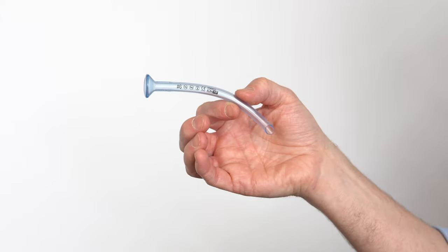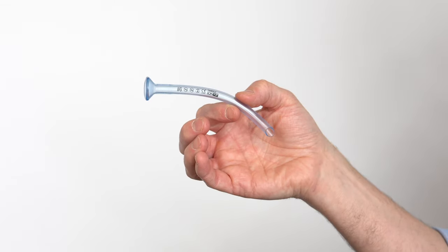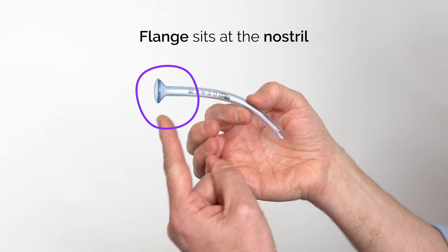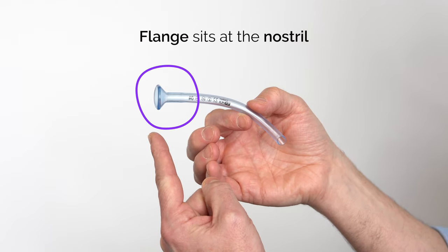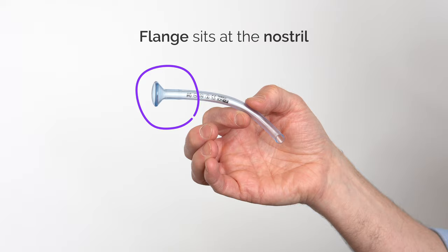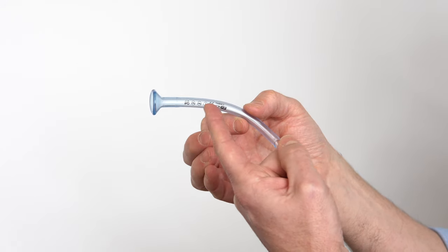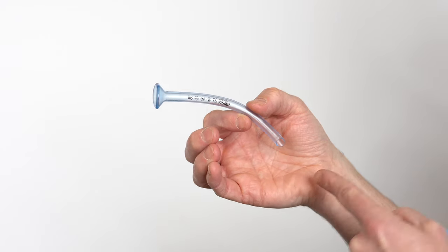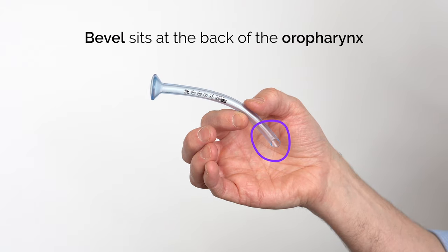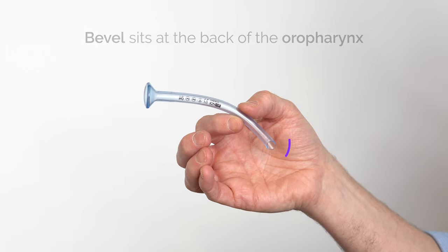So this is the nasopharyngeal airway. It's essentially a tube that goes from the outside of the nose. This flange sits next to the nostril, and then the tube goes through the nasal airway, and the bevel at the bottom sits just at the back of the oropharynx.